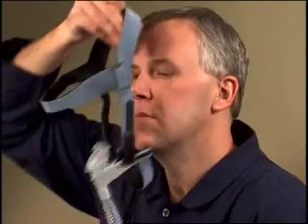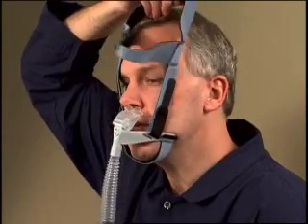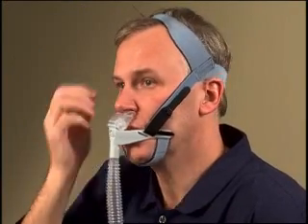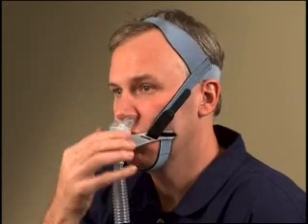Hook the chin support band on the chin and pull the headgear up in front of your face and over the top of your head, bringing the headgear to rest on the back of your head. Place the cushions inside your nostrils. Smooth any kinks or twists in the headgear and finish moving the headgear into the correct position.